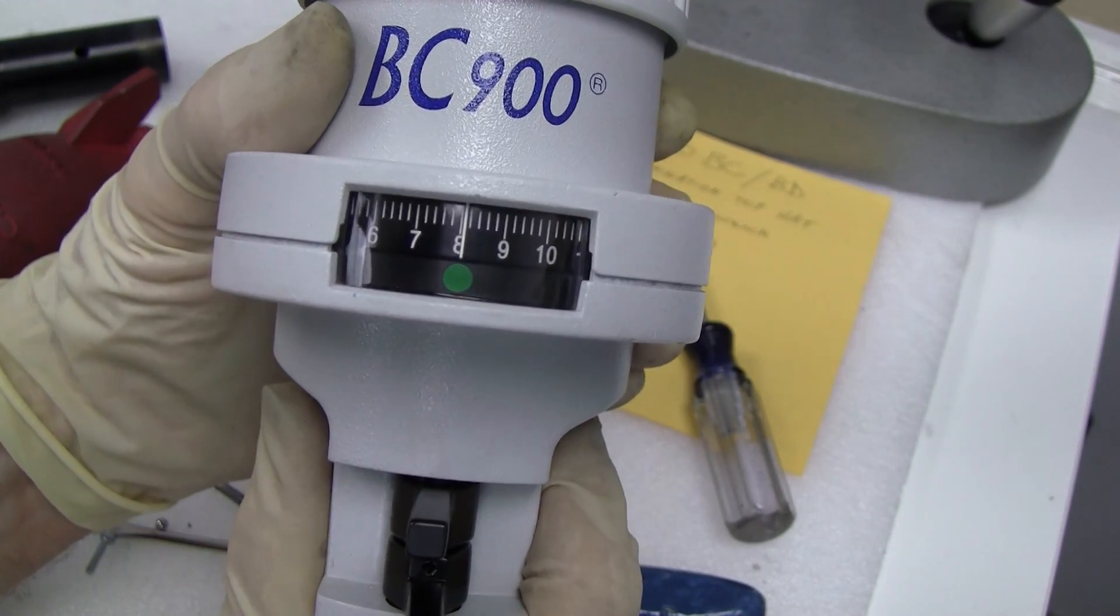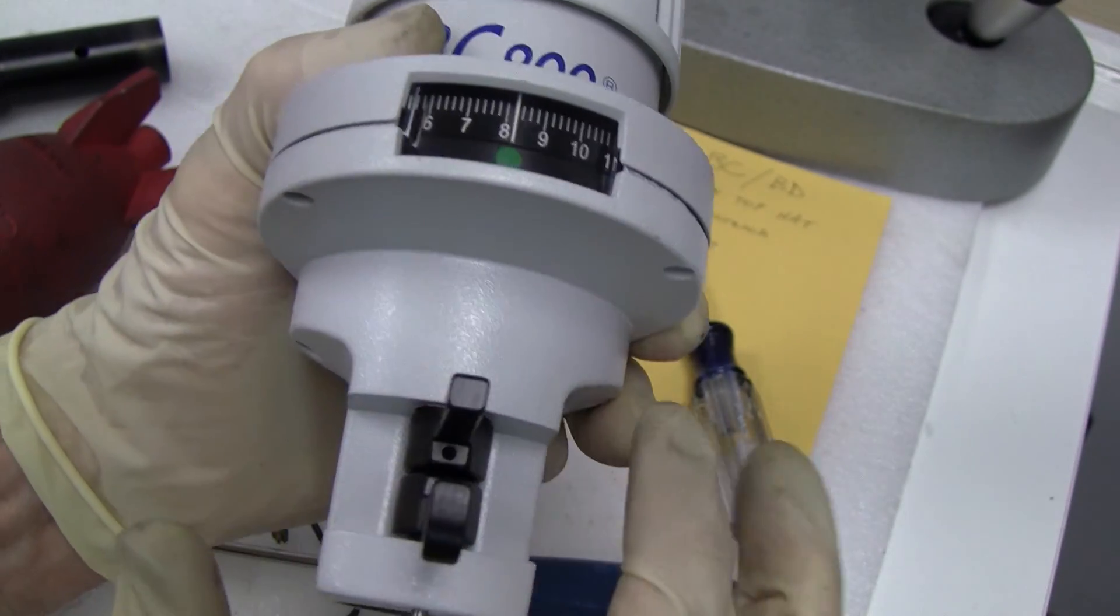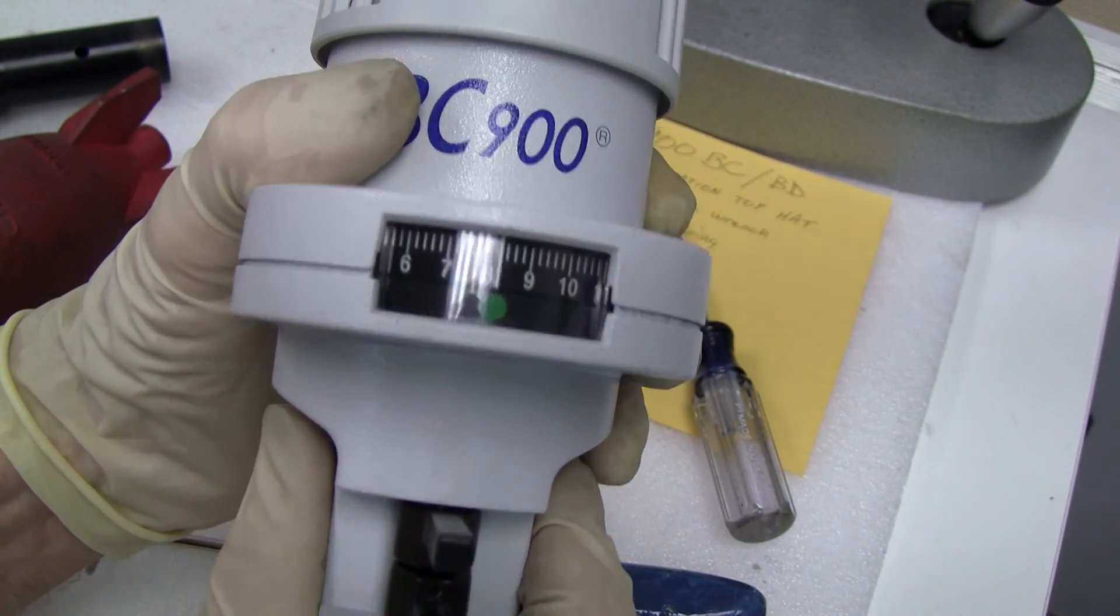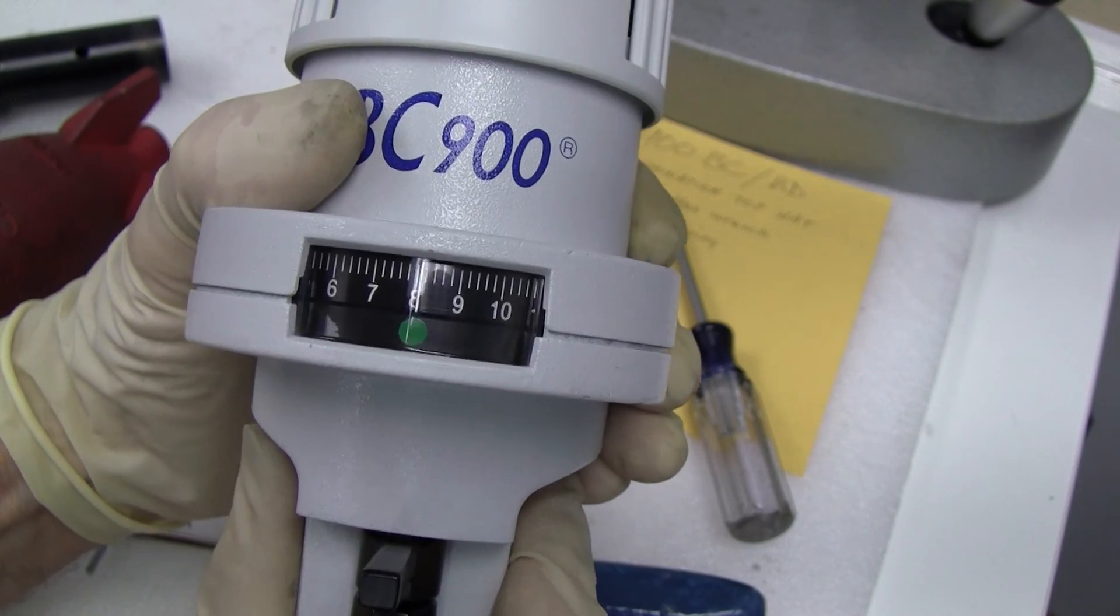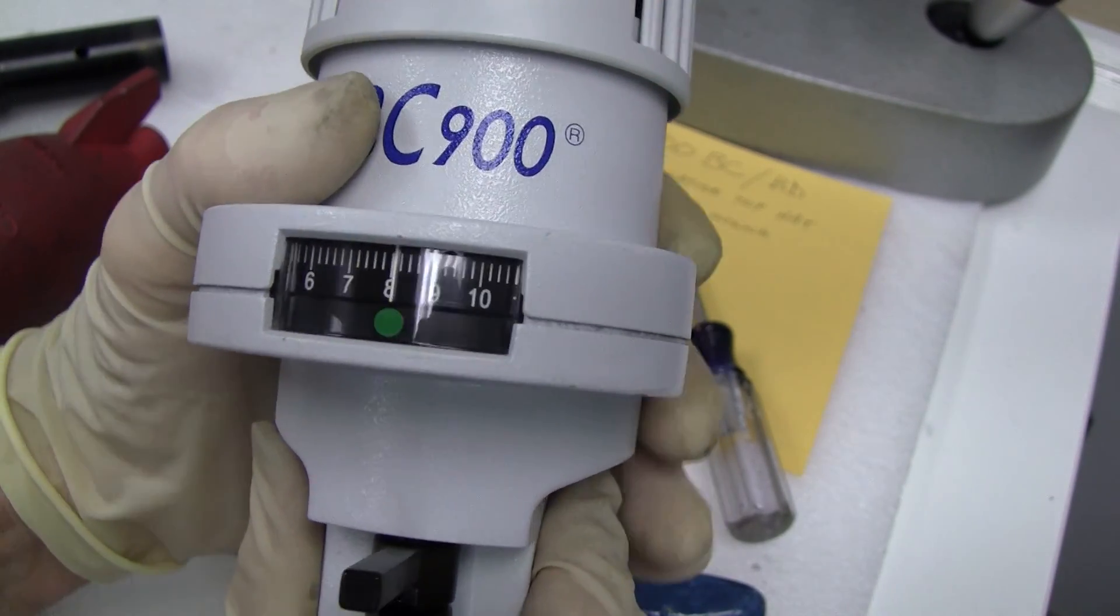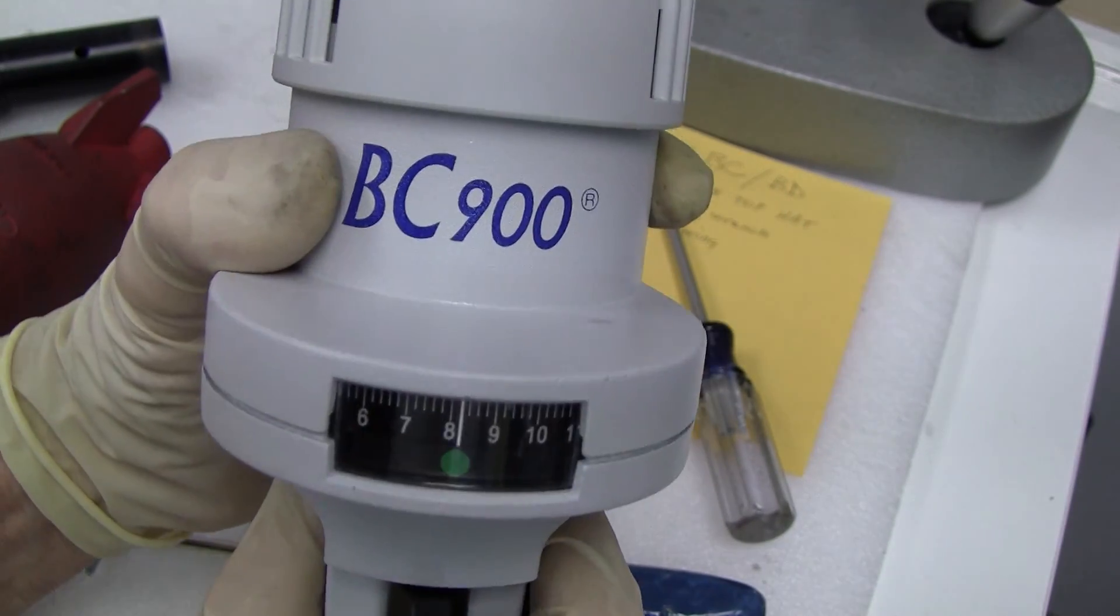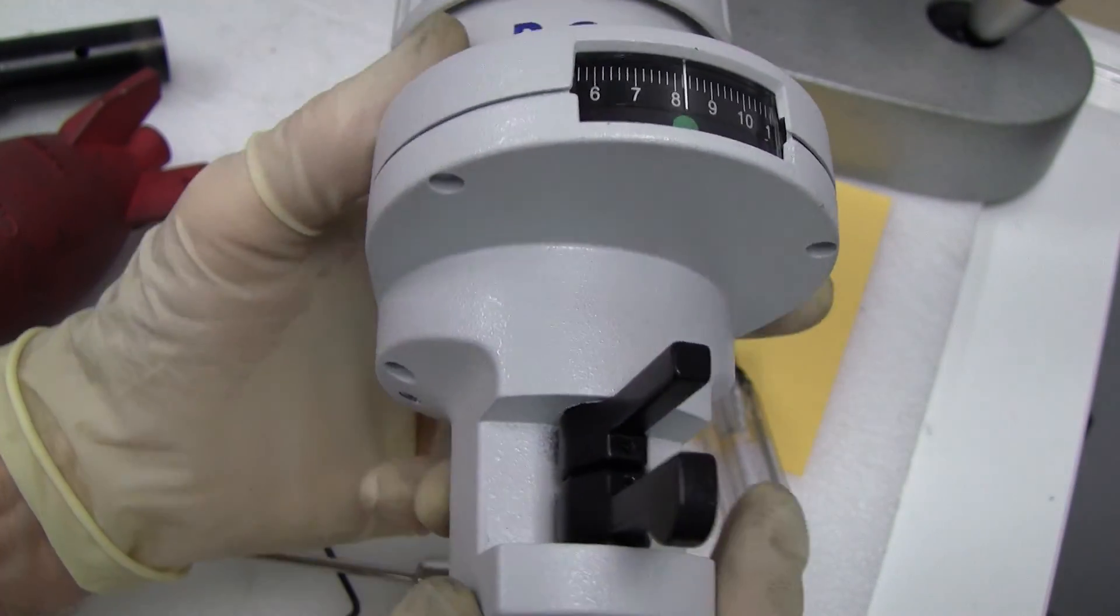And sometimes after you've already tightened it, you see, oh, I need to move it a little bit more. You can either loosen them and turn it a little bit more. Sometimes you've turned it all the way and you still need a little bit more to center it.